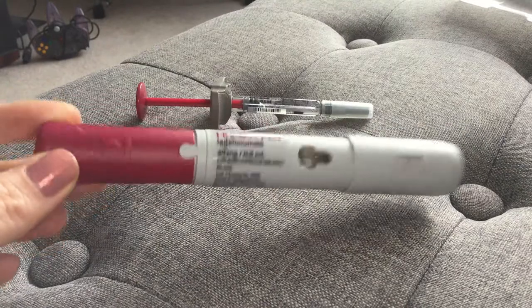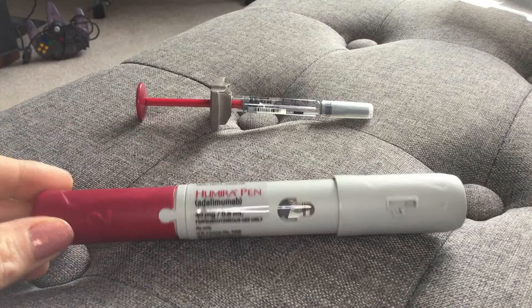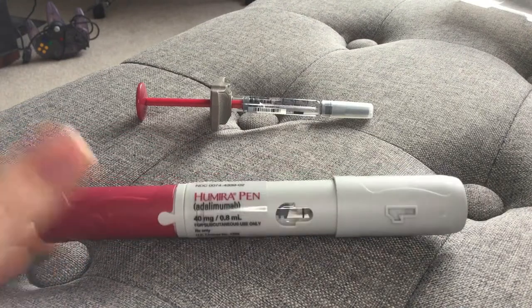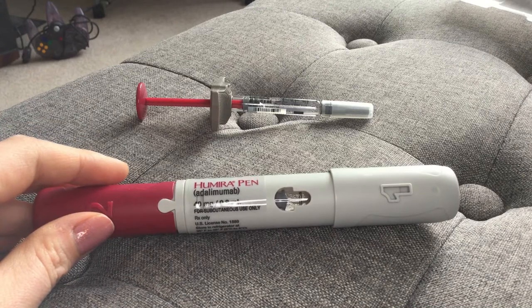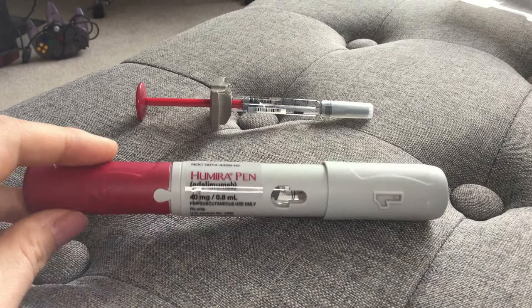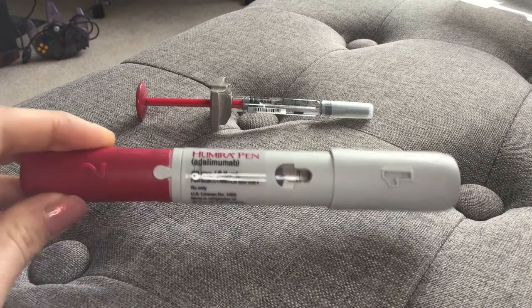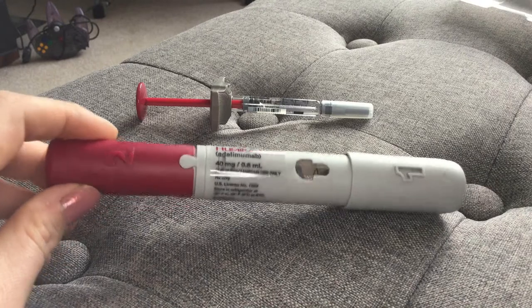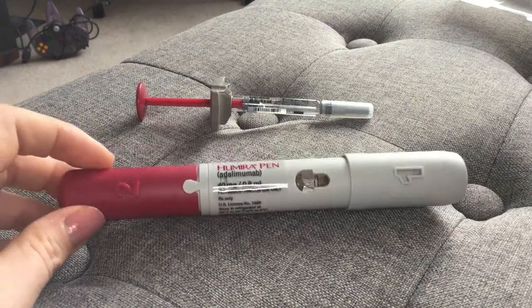A lot of people say that if you have anxiety issues, hitting this button can actually be really scary. Granted I only have to do it a couple times a month, but after three years I looked for other options because hitting the button just became this big deal and I didn't like the noise. I'm very auditorily sensitive. So if you are a visual person, this hides any mechanics, and you can always have somebody else hit the button for you — that's what's great about it. It's so easy to use. However, I just don't like how intense it is.